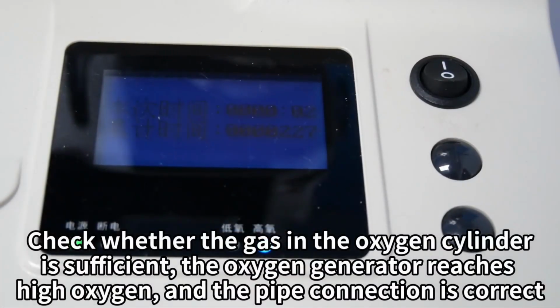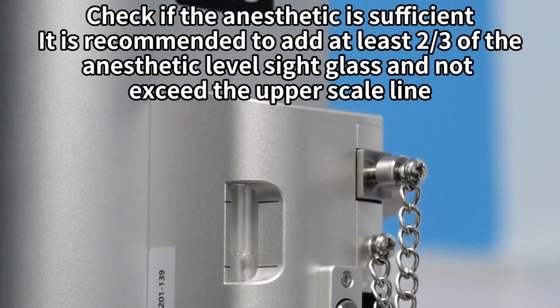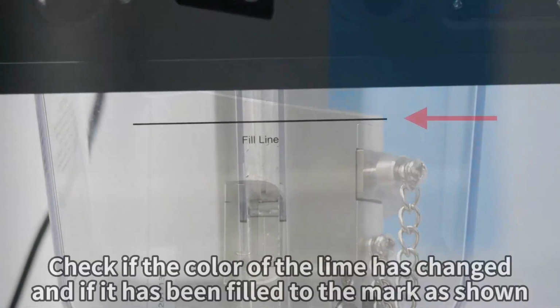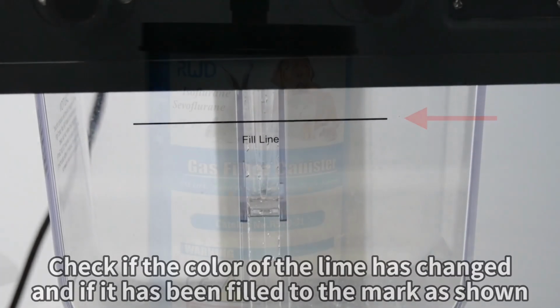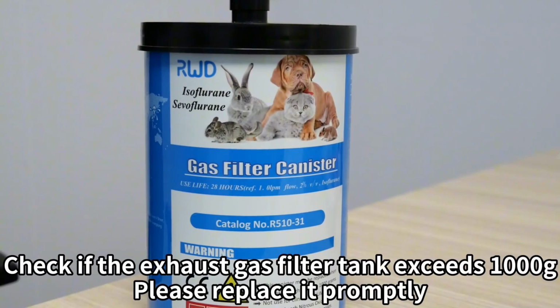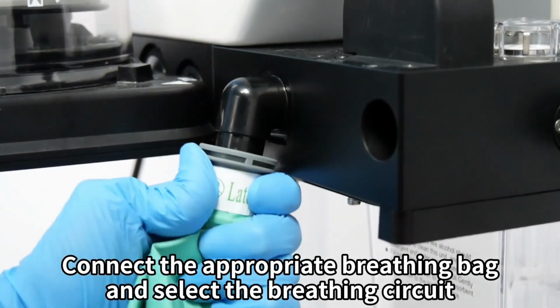Check whether the gas in the oxygen cylinder is sufficient, the oxygen generator reaches high oxygen, and the pipe connection is correct. Check if the anesthetic is sufficient. It is recommended to add at least 2/3 of the anesthetic level sight glass and not exceed the upper scale line. Check if the color of the lime has changed and if it has been filled to the mark as shown. Check if the exhaust gas filter tank exceeds 1 kilogram. Please replace it promptly. Connect the appropriate breathing bag and select the breathing circuit.